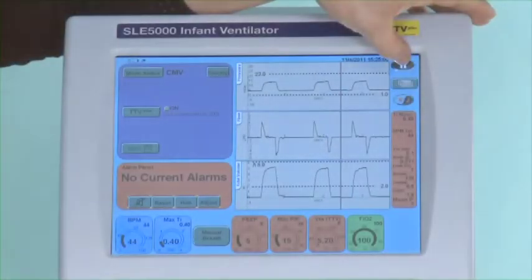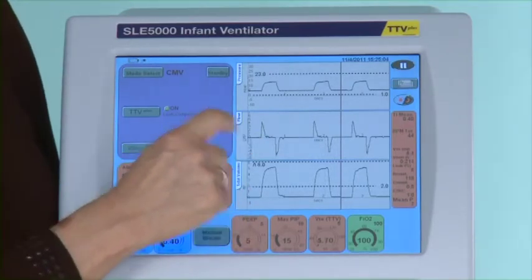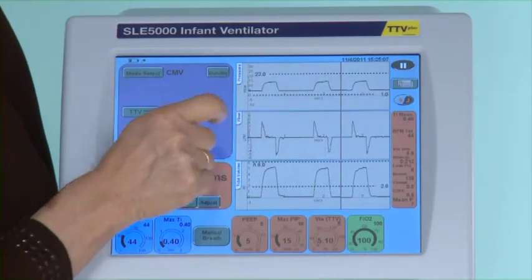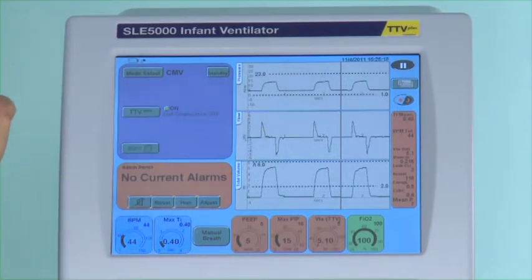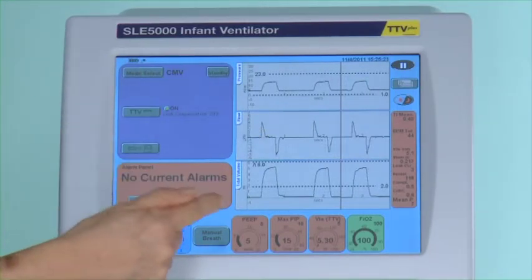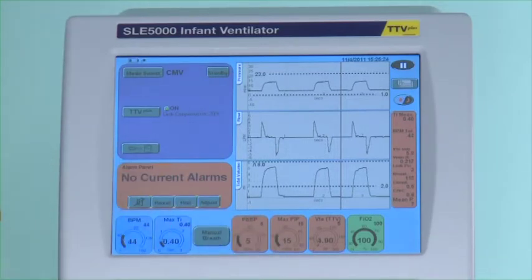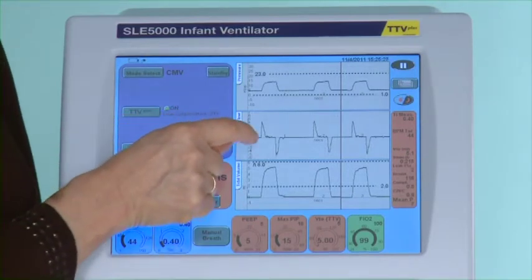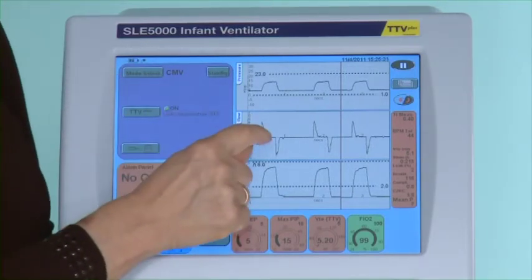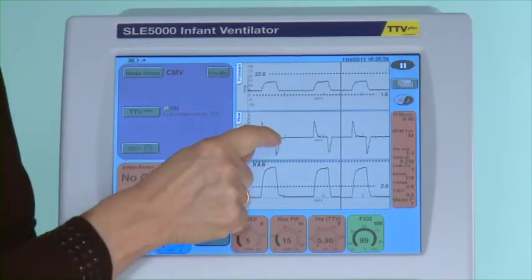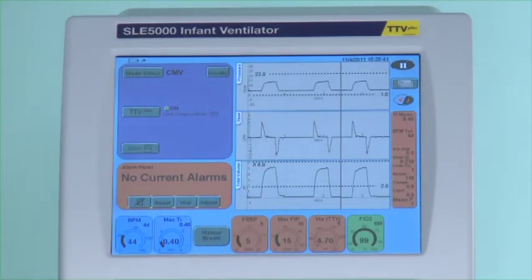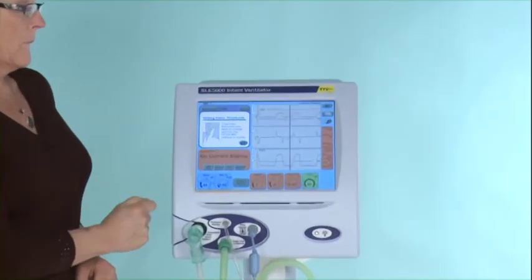In CMV when there is no patient interaction, one area to look at would be in the flow window. With the changing in resistance and compliance I am going to pause the waveforms on the screen. Looking in the flow window you may see that the inspired and expired times for that baby's lung mechanics are not correct. Often by adjusting the inspired and expired times you will get better volumes without having to adjust pressures. Inspired time always has to begin and end on the baseline, and the expired time has to start and end on the baseline. Anything other than that is incorrect for that infant at that point in time.